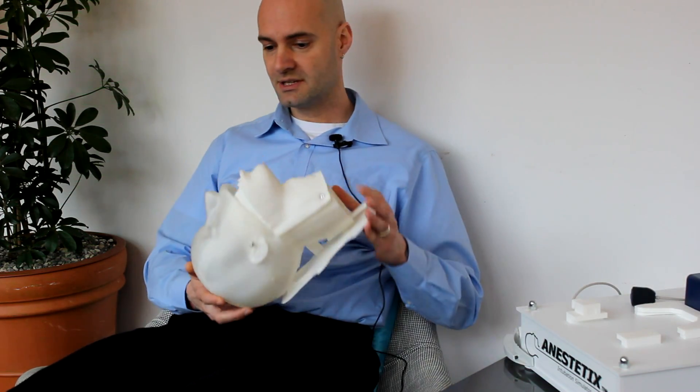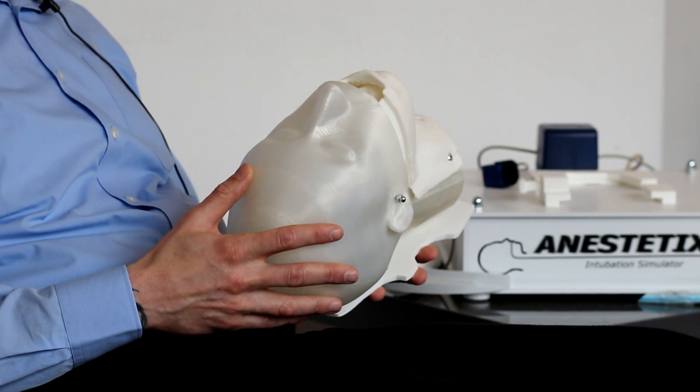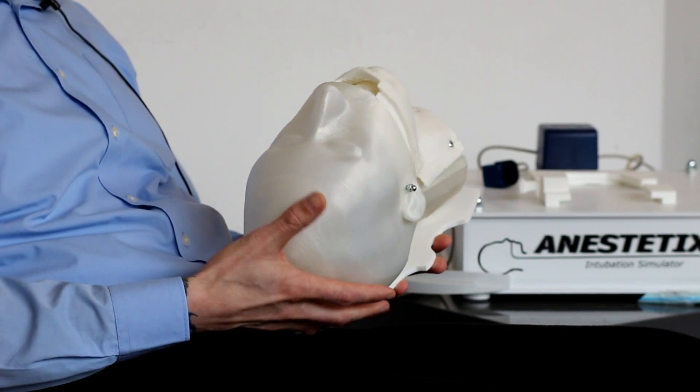The main component that the user will interact with in my simulator is the head. I have a model of an adult head here with me. So apart from the software this is what the user will handle.